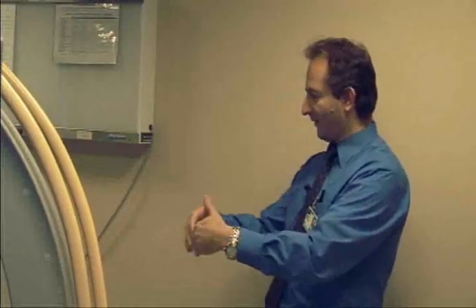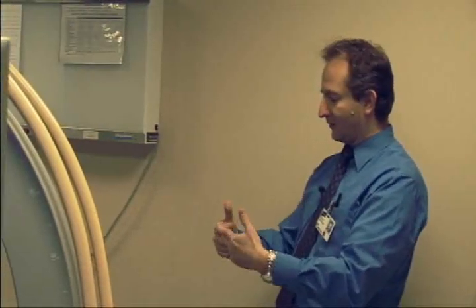This means that whenever you're at the table performing a procedure, you should stay as far as you can while still being comfortable. Each time you press the button, you should use as little time as possible to make the image.